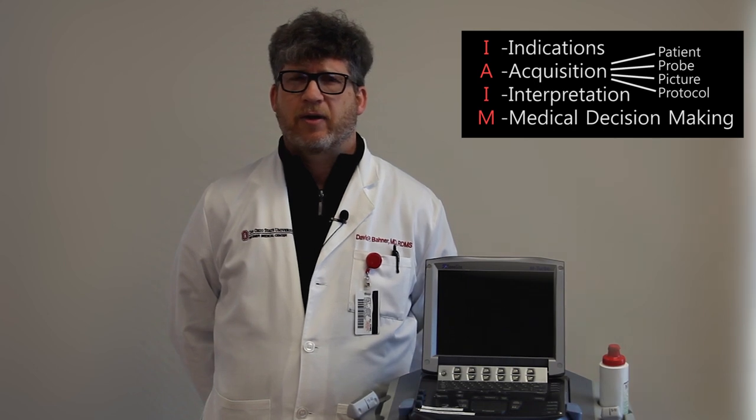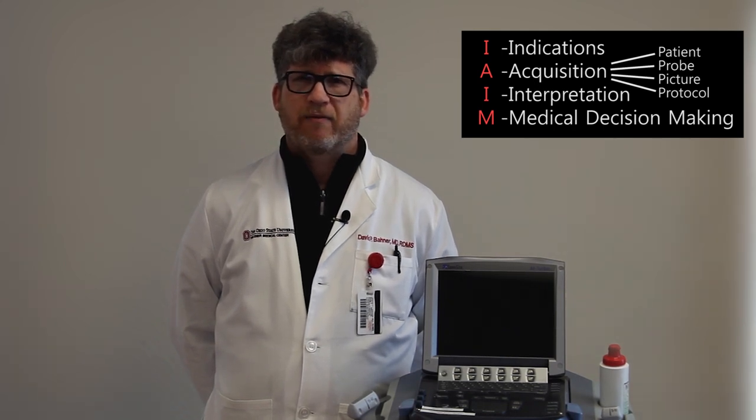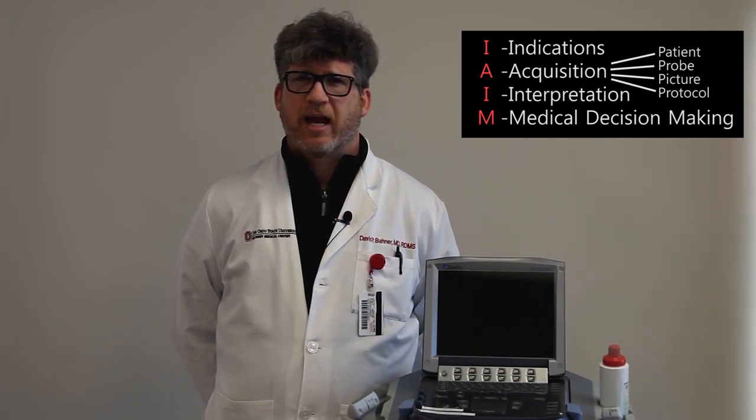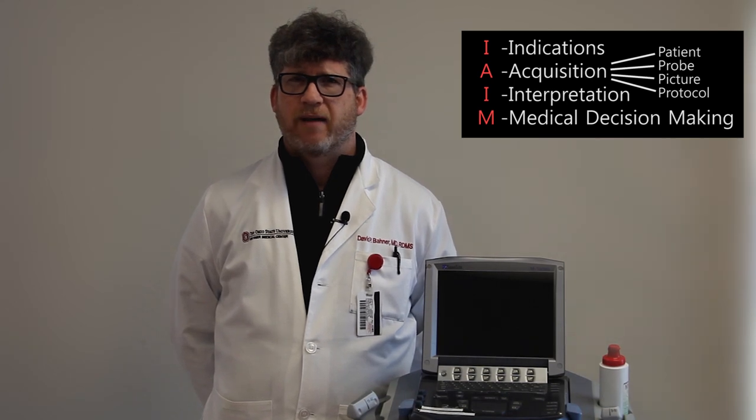This video introduces a framework for using and applying ultrasound in a clinical medical setting. This model we've developed here at Ohio State is IAIM, an acronym which stands for I for Indications, A for Acquisition, I for Interpretation, and M for Medical Decision Making.